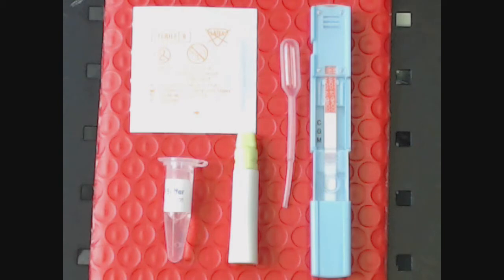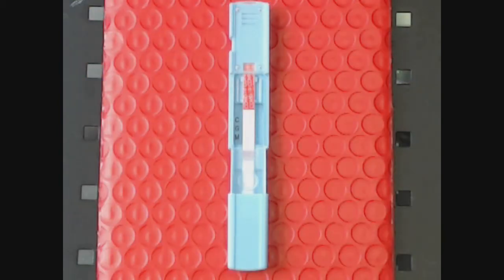I want to introduce you to the COVID-19 rapid test strip. This is from Alpha Scientific, and these are going to be the test strips you will be receiving for our COVID-19 testing. I want to give you an introduction on what this cassette is, what it does, and some of the special features.